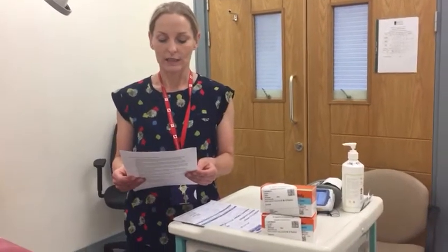The purpose of this video is to demonstrate the correct procedure for requesting and reconstituting prothrombin complex concentrate, also known as PCC, from Blood Bank University Hospital Limerick. This video is to be used as an educational tool in conjunction with the procedure and in addition to attendance at the mandatory hemovigilance education.